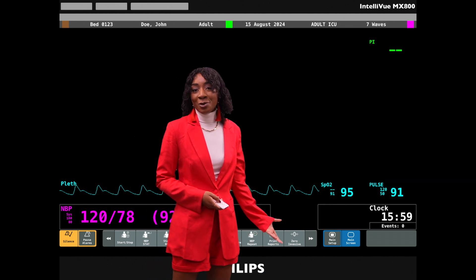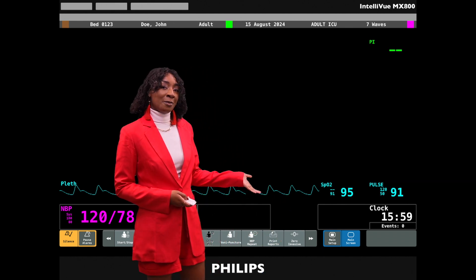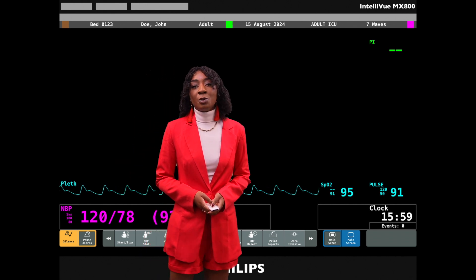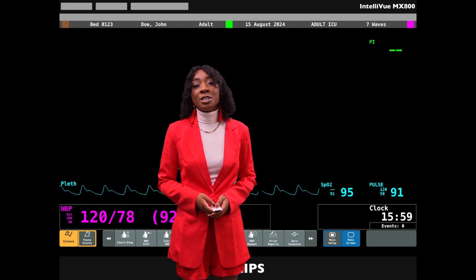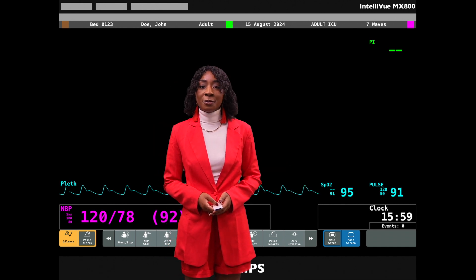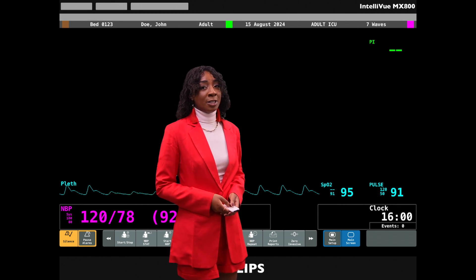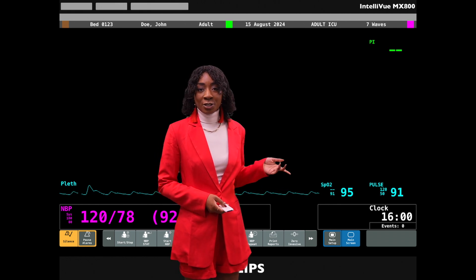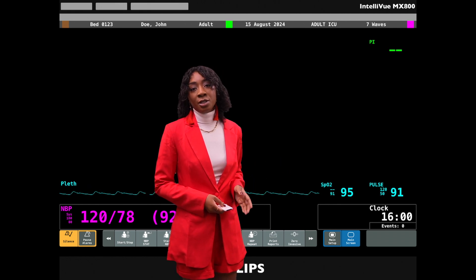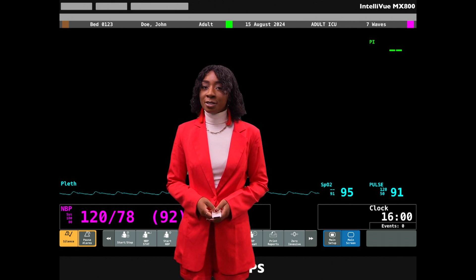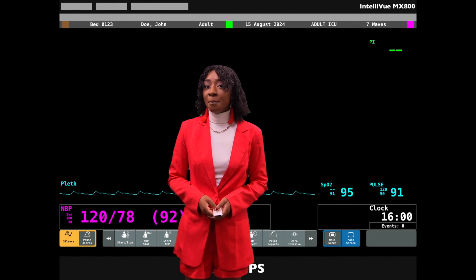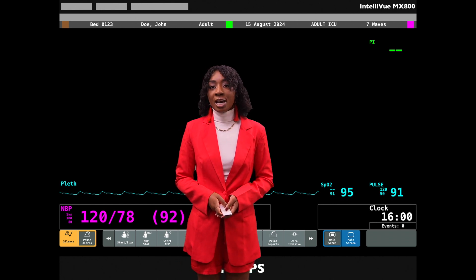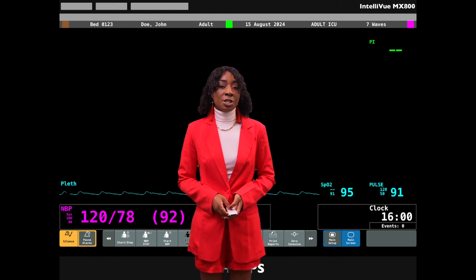Now let's talk about the waveform, also known as the plethysmograph, displayed on the monitor. The waveform gives us additional information beyond just the SpO2 percentage. The waveform should have a regular pulsatile pattern — a smooth, consistent waveform indicates a good signal and reliable reading. Irregular or flat waveforms may suggest poor contact, motion artifacts, or low perfusion. Pay attention to the height of the peaks, which should correlate with the pulse amplitude; lower peaks might indicate poor perfusion or a weak signal. If the waveform is poor, make sure the sensor is placed correctly and the patient is still. The machine averages readings over a recent time range, so changes in saturation will be delayed.